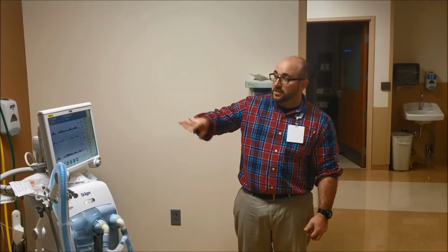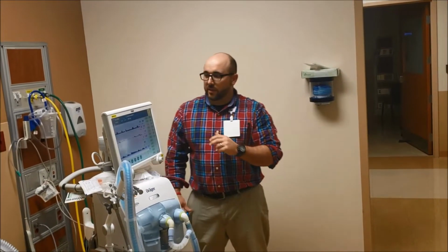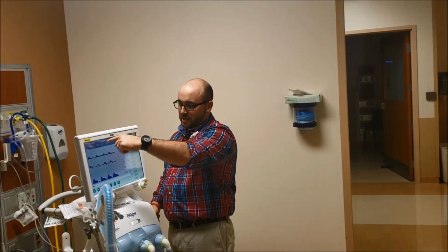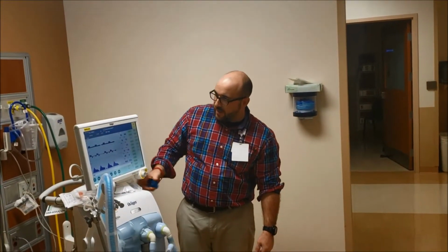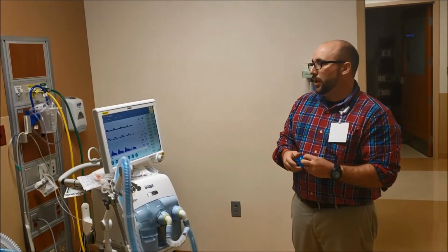The thing is that once the alarm is fixed, you see how it goes from red and it kind of blends into the background. It's nice to have these here because let's say you're at the desk and an alarm came, you come over and see something blending in the background, that's an old alarm. What I would do when you see the old alarm, and you guys are perfectly fine to do this, is say alarm reset, see it highlight our button right here, and then hit this and it clears off the top. So then you're all clear, so if it alarms again, you'll know about it.